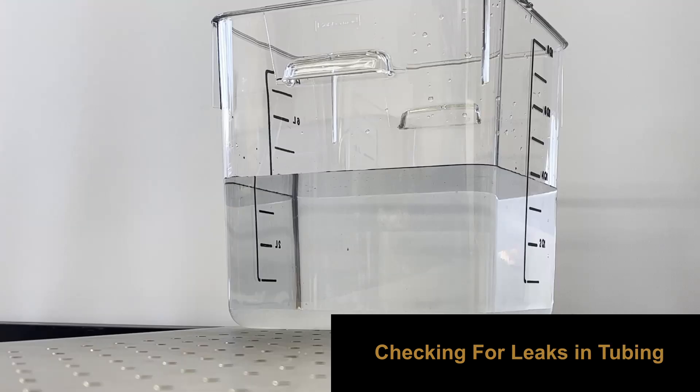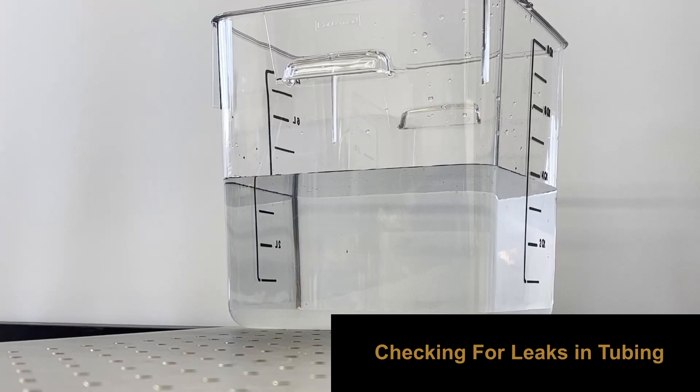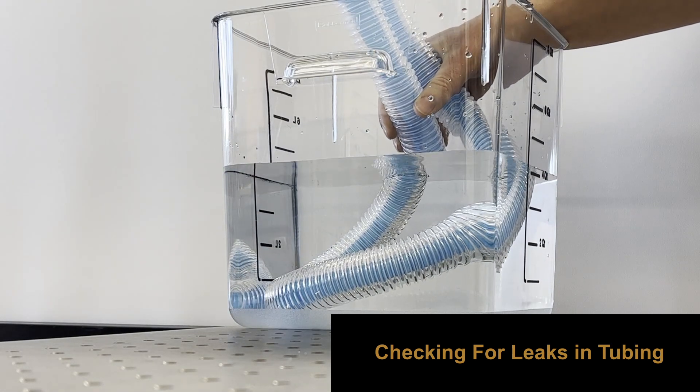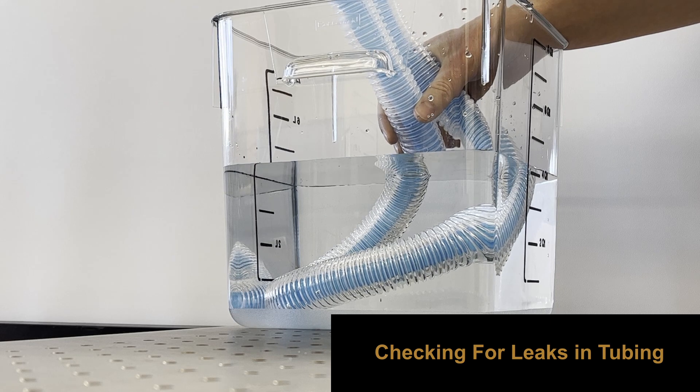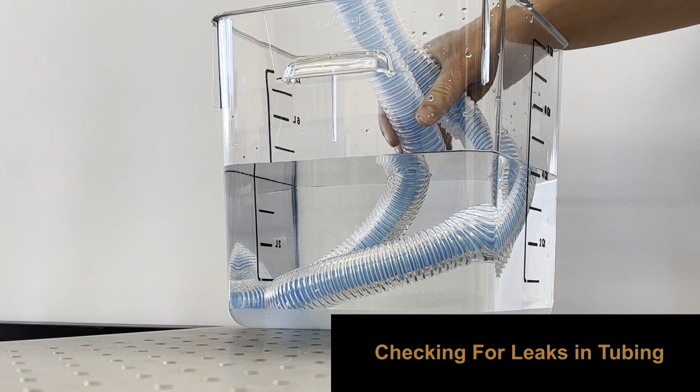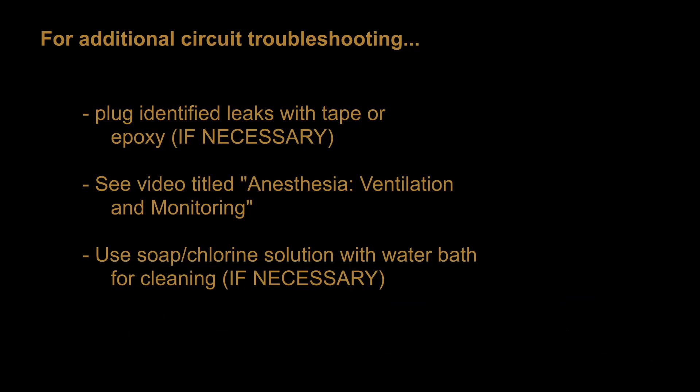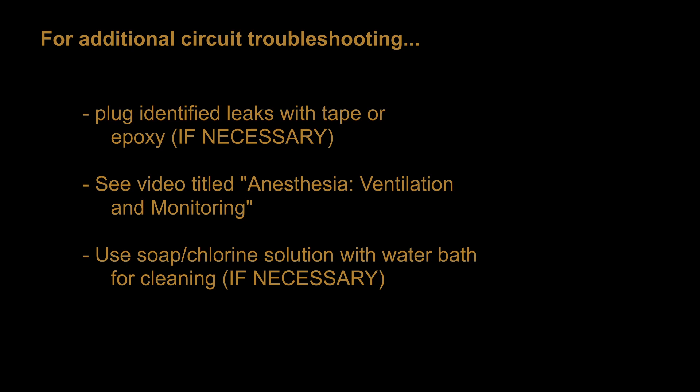To identify leaks in the tubing, fill a tub with water and submerge the suspected section, making sure to keep both ends exposed to air. If there is a hole in the tubing, bubbles will be seen rising from the area. It is best to replace compromised tubing, but in cases where this is not possible, holes may be repairable with a safe tape or epoxy. Another demonstration of checking for leaks can be found in our video titled Anesthesia, Ventilation and Monitoring.